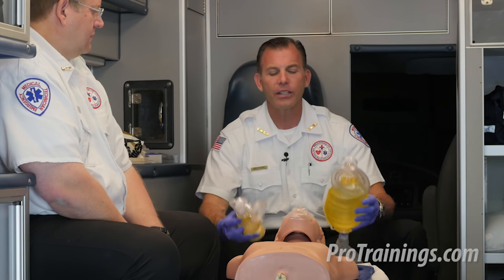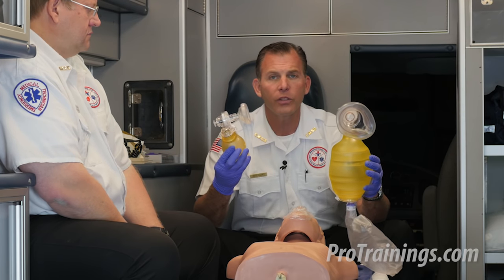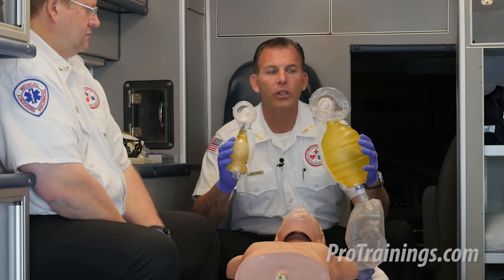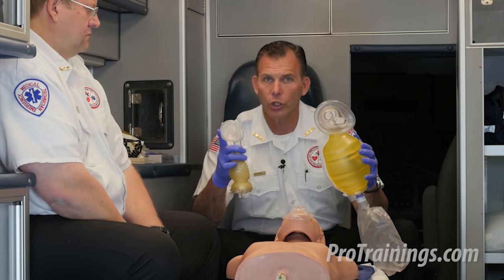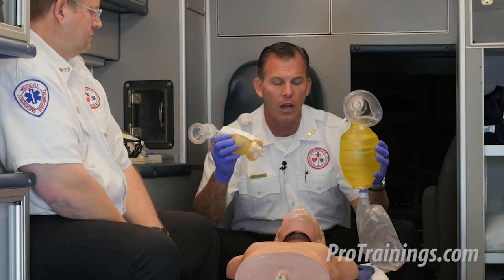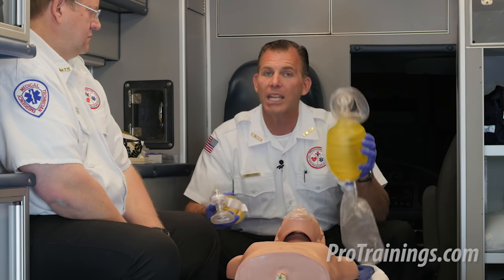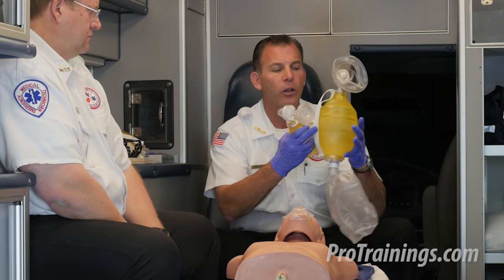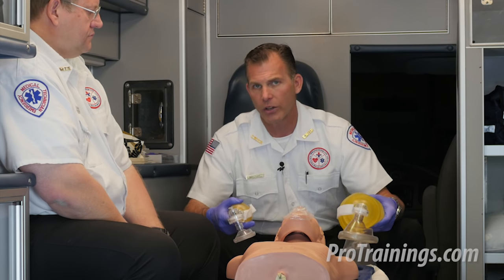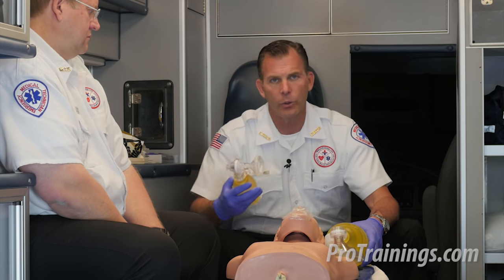There are a couple of different sizes to note. As you can see, there's clearly a difference between these two bag valve masks — one is for an infant, the other is for child and adult. They deliver different amounts of air into the lungs and have a different size mask that corresponds with the size of the bag itself. We don't want to use the large one on an infant, but we can if that's all we have. Just keep in mind we can deliver a lot more air with a big bag, so we must only give the infant enough air to see chest rise and fall. Ideally, you get the right size tool for the right size job.